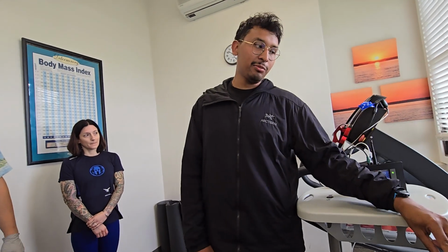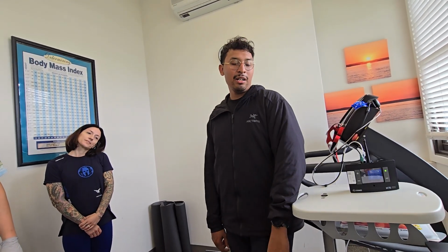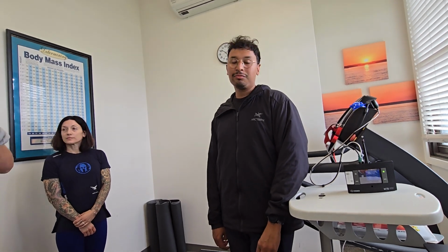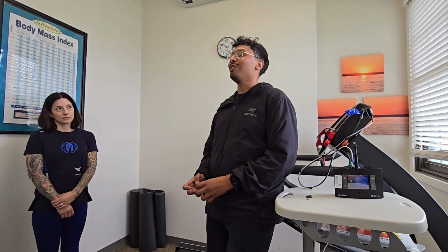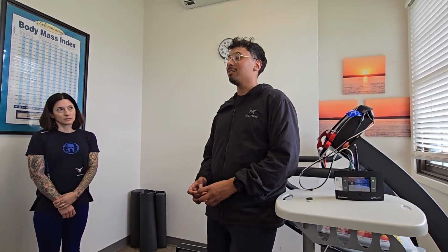I'm going to go ahead and choose breath by breath. Will it tell us if we're not calibrated to the one we pick, or do we have to know? I don't think so, to be honest with you. Okay. Yeah.